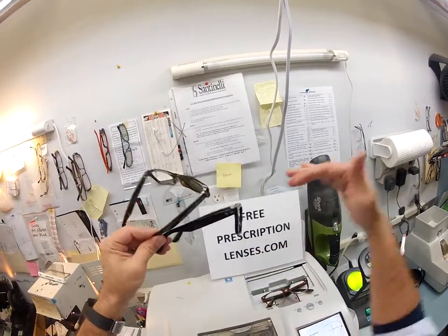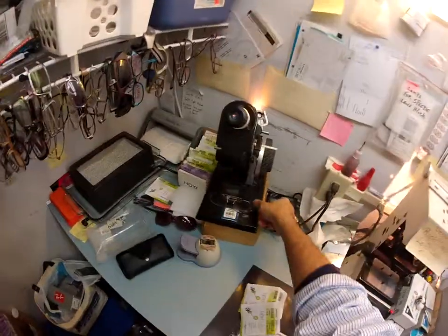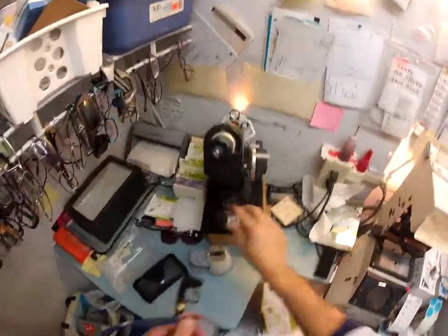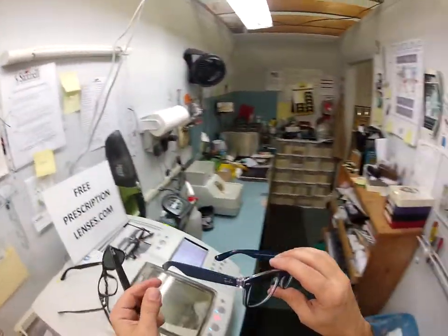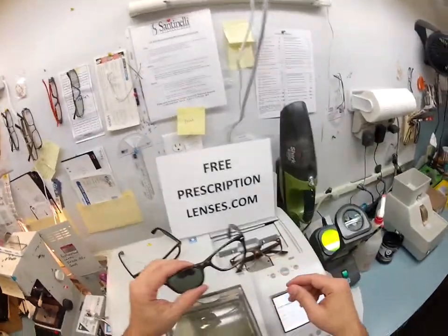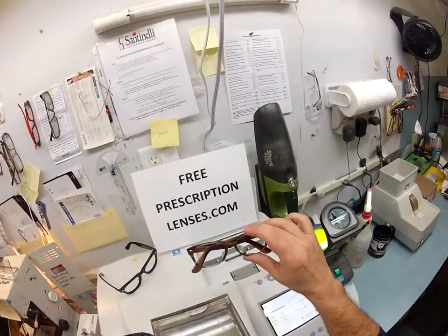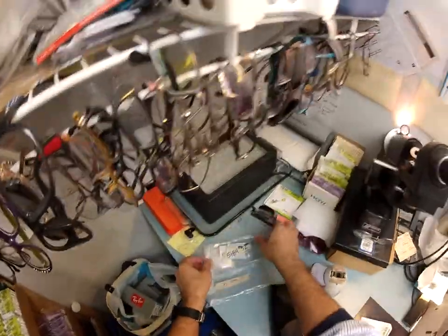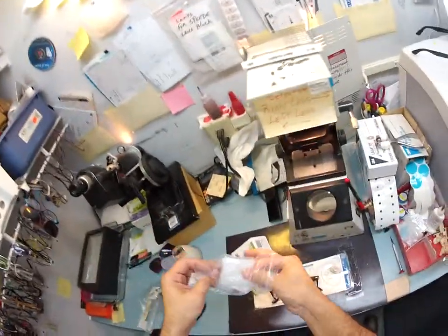This one has a weird tilt to it — it tilts away, letting light in over the top. In 1992 they redesigned it so it fits in closer, which to me is much more comfortable and what I wear in all my videos. I've got a cut tonight in the 55 eye size — it comes in two sizes, the 52 and the 55. This is color 6053, blue crystal, which goes very well with a blue and white shirt. This look is so popular that Ray-Ban has come out with the ophthalmic version with clear demo lenses, and I use the original as a template to cut all lenses by.